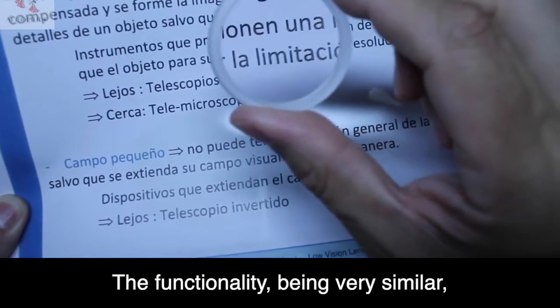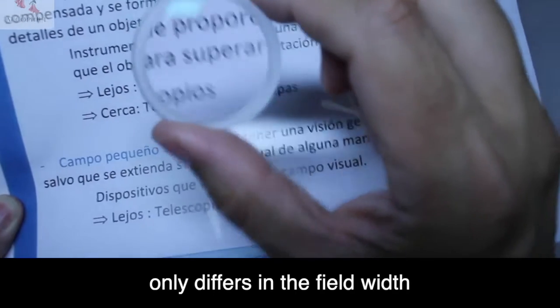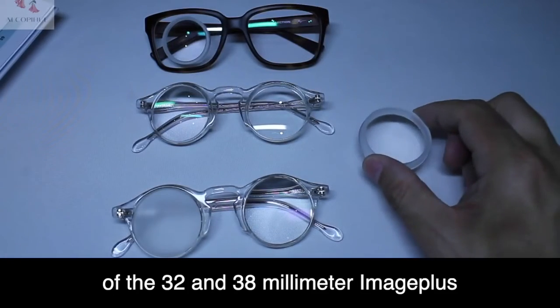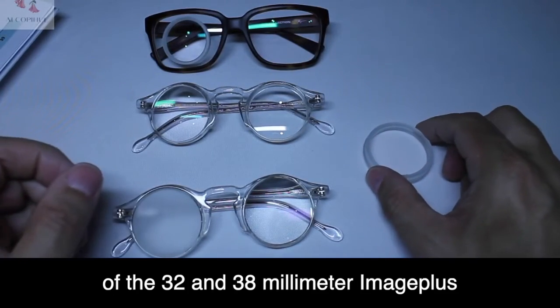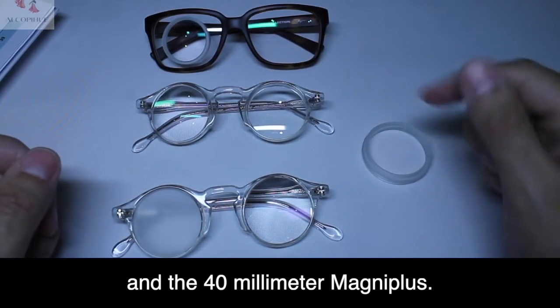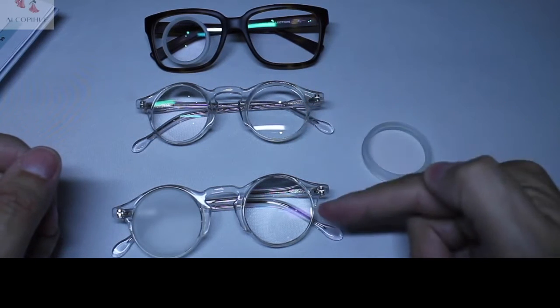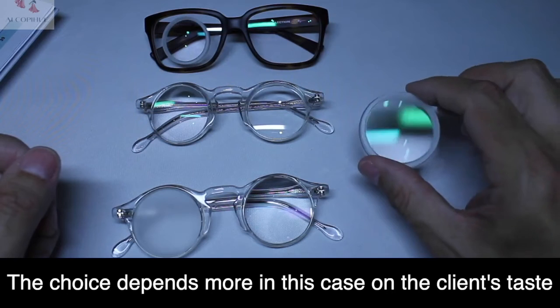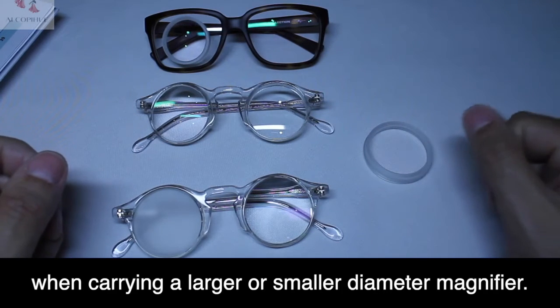The functionality is very similar, differing only in field width between the 32mm and 38mm ImagePlus and the 40mm MagniPlus. The choice depends more on the client's preference for carrying a larger or smaller diameter magnifier.